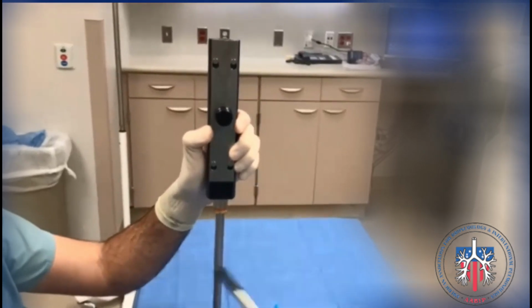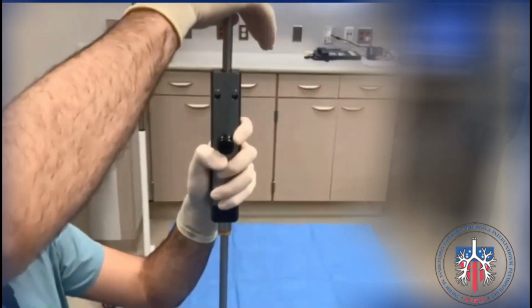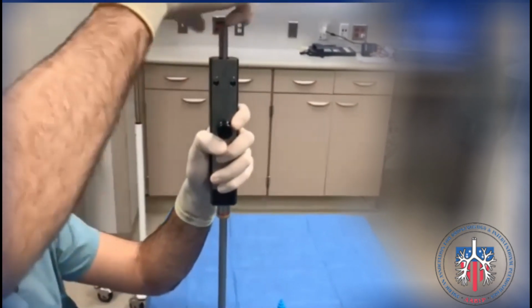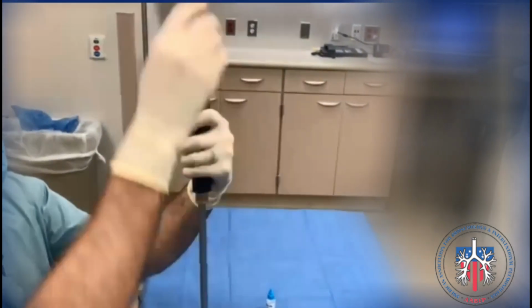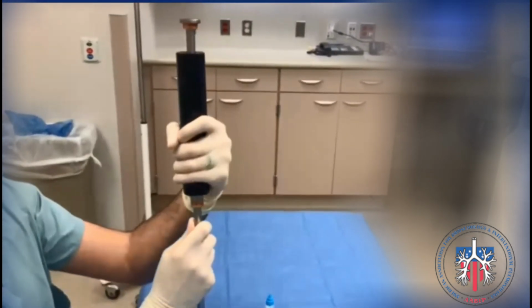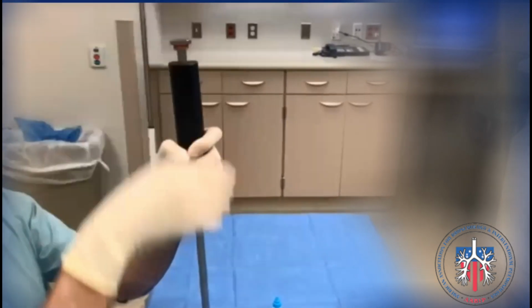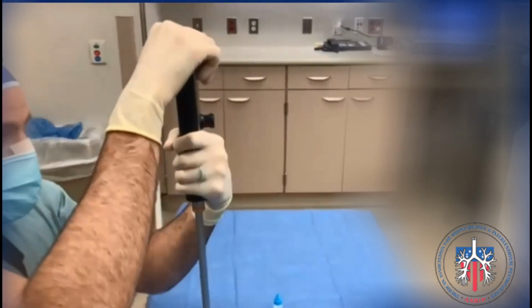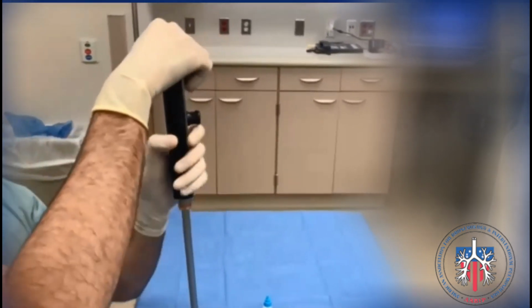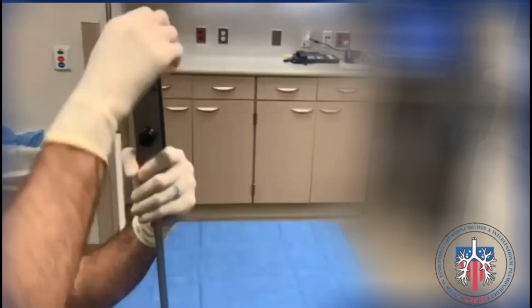Then, introduce the rod into the open end of the stent funnel. Gently press down in the vertical position to progressively push the stent into the introducer tube. If you feel resistance, stop pushing. Rotate the Y stent loader slightly over the introducer tube to allow the stent to reposition itself. Repeat as needed until the stent is completely inserted into the stent introducer.